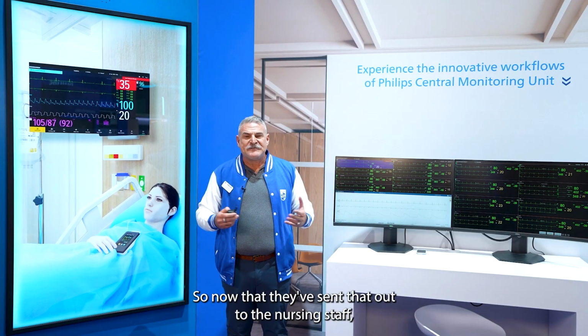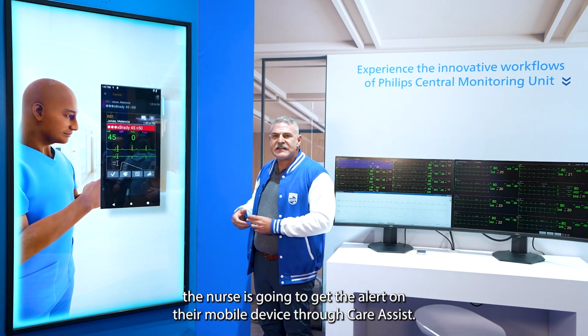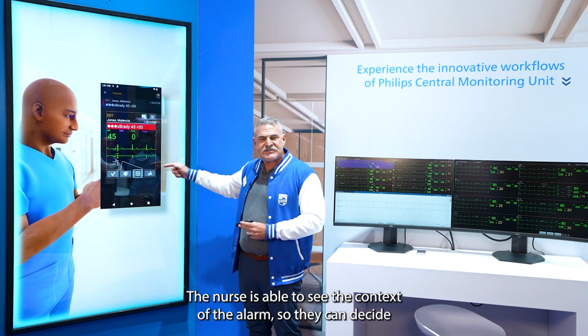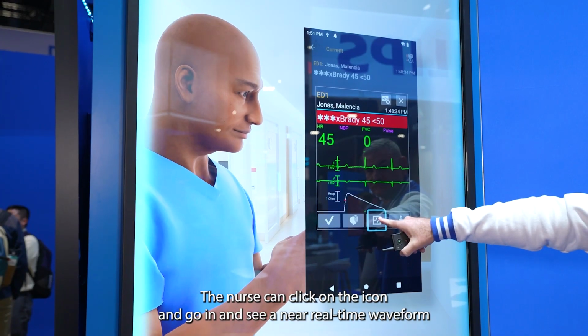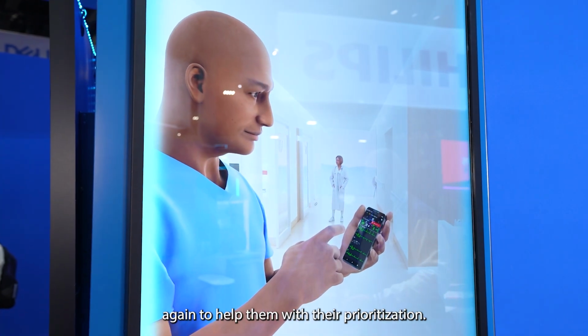So now that they've sent that out to the nursing staff, the nurse is going to get the alert on their mobile device through Care Assist. The nurse is able to see the context of the alarm so they can decide if this is a priority or something they can wait to react on. The nurse can click on the icon and go in and see a near real-time waveform, again, to help them with their prioritization.